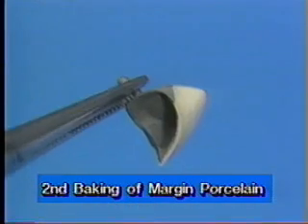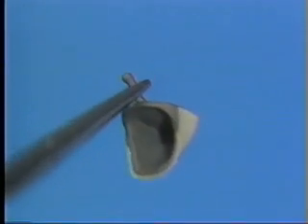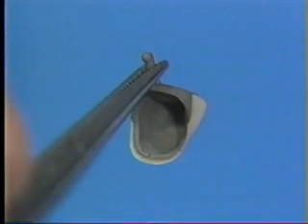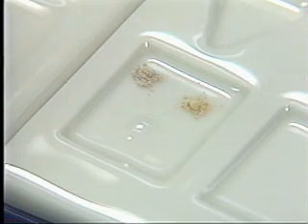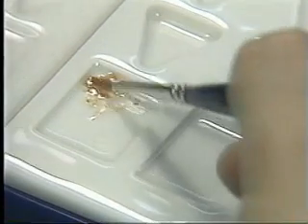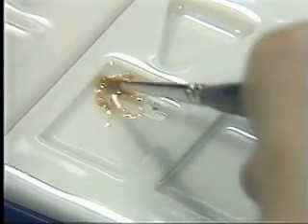Here is the finish of the second baking, which shows excellent fitting. Look at another case. Because of the thin porcelain layer on cervical, internal stain is applied on margin porcelain. Mix cervical 1 and cervical 2 at a ratio of 1 to 1, and then mix it with internal stain liquid.